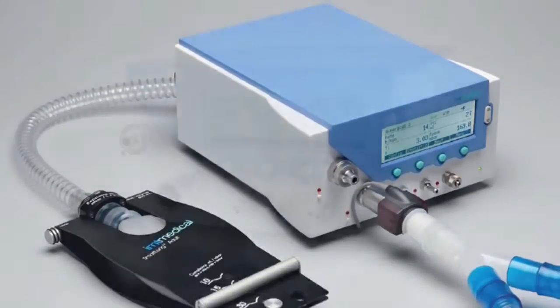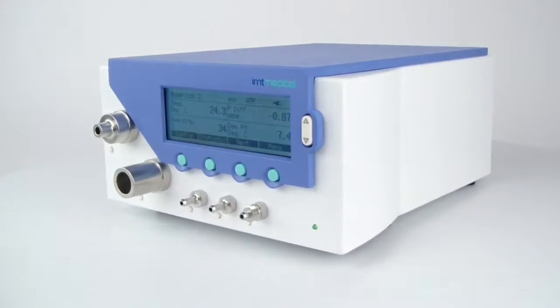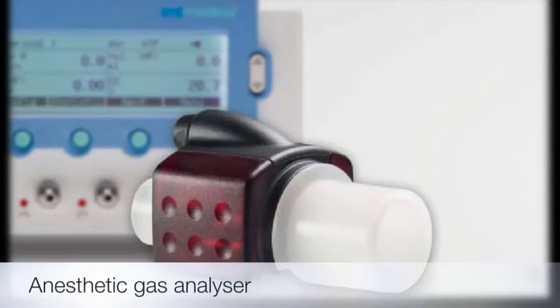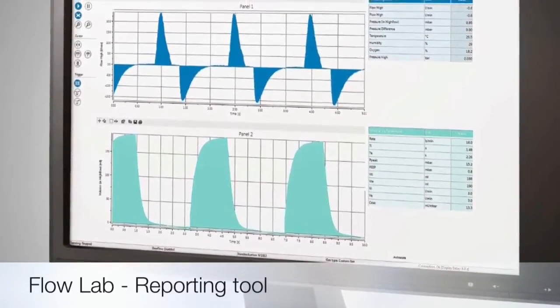Optionally, an anesthetic gas sensor can be connected to test any anesthetic workstation. Flow Lab is an advanced software tool for detailed analysis and reporting of all parameters.